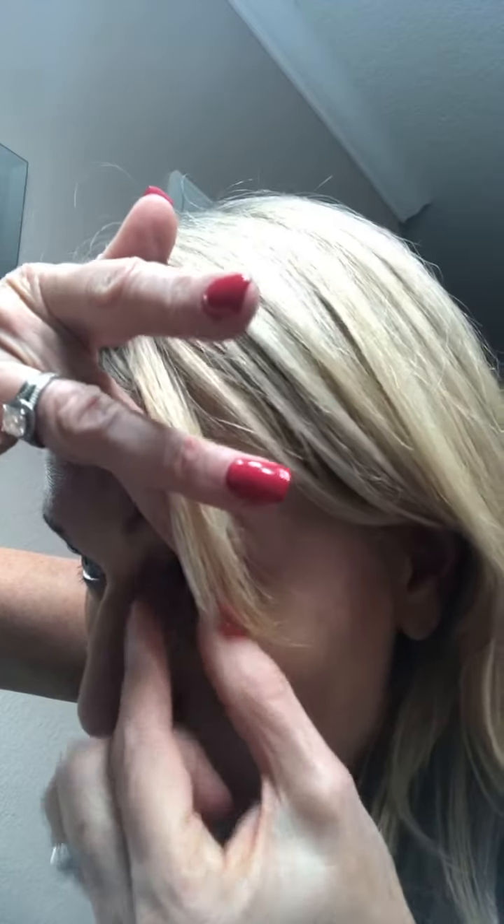Let's see if I can get these out — it's going to be freaky. It doesn't help that I have makeup on. My sister said look down. I think I'm supposed to hold my lid open. You know what, I need something for my hair — which means I'm going to have to wash my hands again. Let me put this hair thing in and wash my hands.